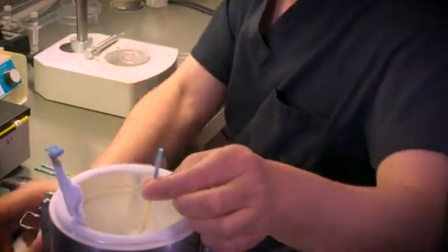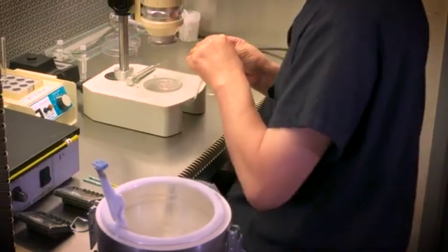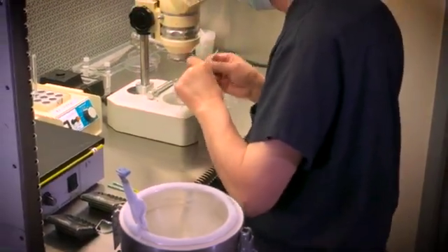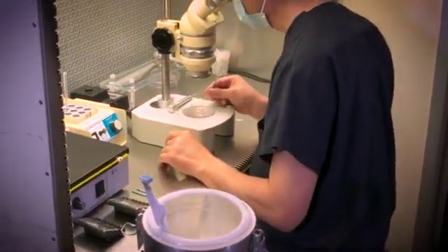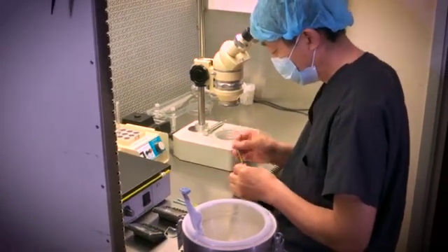The freezing process for these viable embryos is called vitrification. This process includes the dehydration of the embryos under careful monitoring and timing in order for the embryo to safely survive until it is time to transfer the embryos into the uterus.